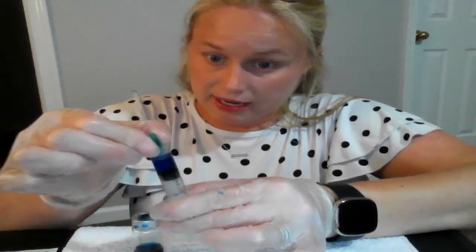I'm going to flip this back over and remove the needle. Normally I would lay the cap on my surface and use one hand to guide the cap back on, then click it on fully once the cap is covering the needle. Since this is a blunt tip without a cap, I'll go ahead and remove it. Now we have our syringe ready — you don't want to touch any part of it as that can contaminate it and potentially harm the patient. That concludes the demonstration of how to draw medication out of a vial.